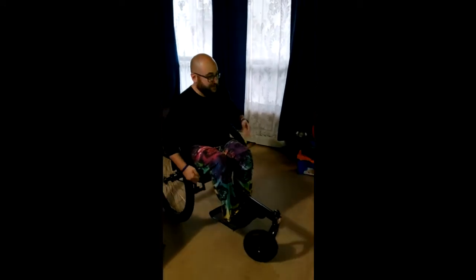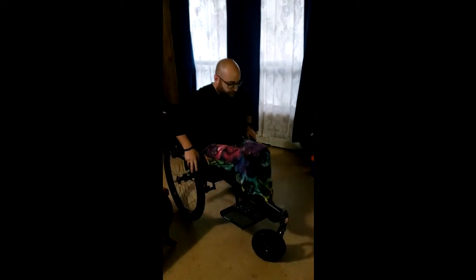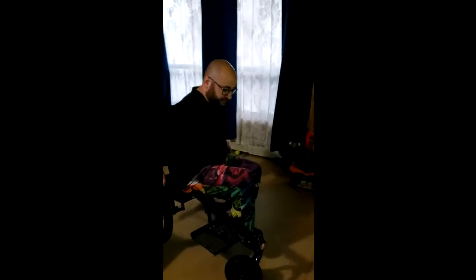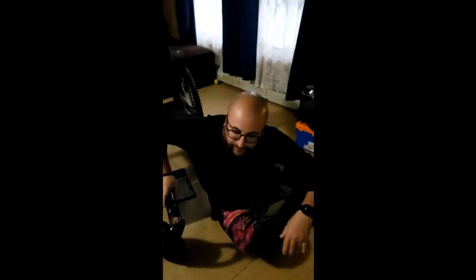Now from the ground — back to the ground and then back up in. I put my legs over to one side, slide forward, put one hand on the boom, one hand on the tire, get my legs a little — there we go — and then just kind of slide down. Usually works on most surfaces.